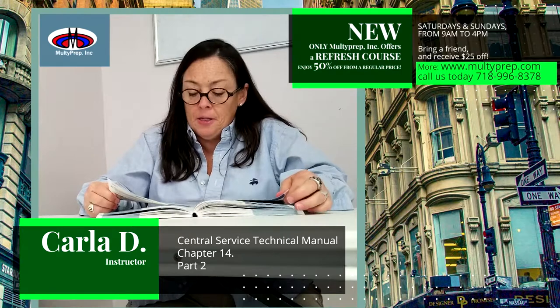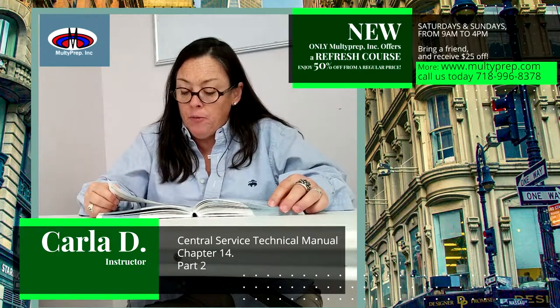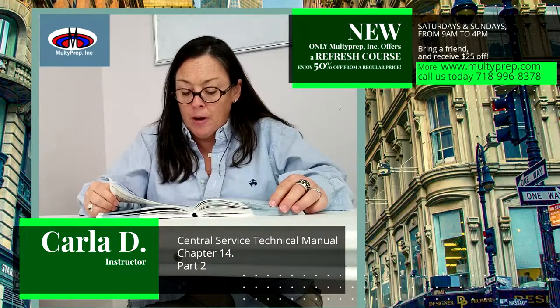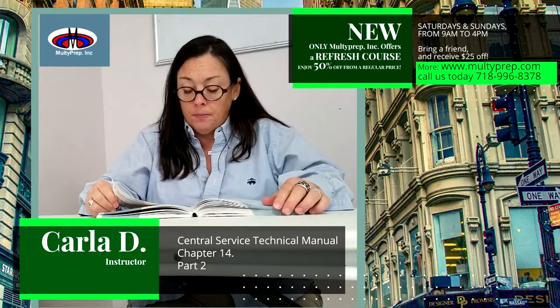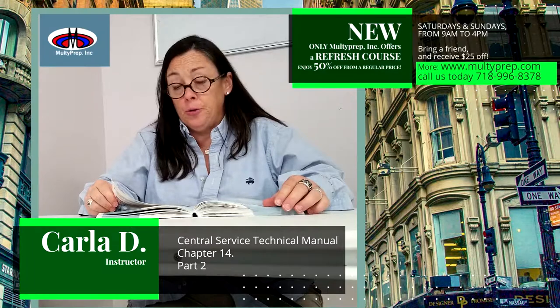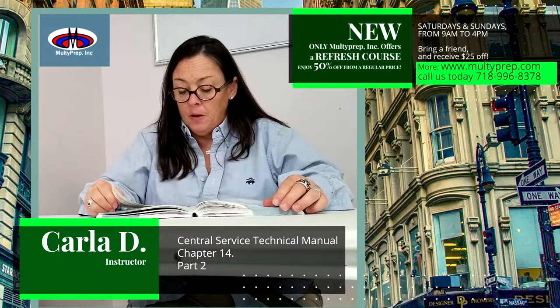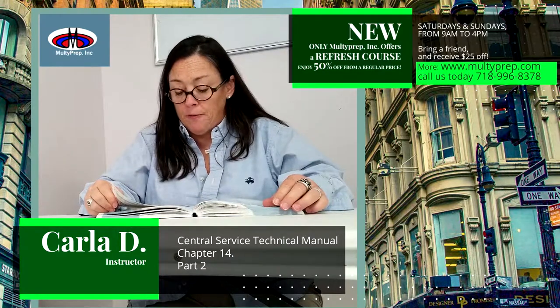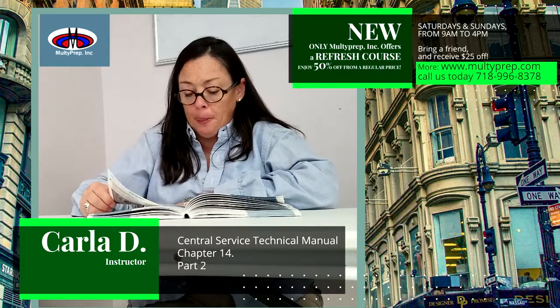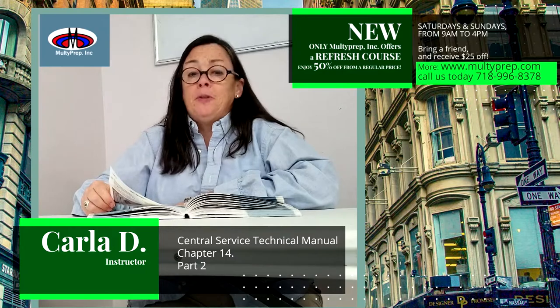Loading a steam sterilizer. To ensure full steam contact and removal of air, the sterilizer must be properly loaded to allow adequate circulation and drainage of condensate. Basic procedures for loading include allowing for proper steam penetration and avoiding overloading. Packages must be placed for efficient air removal, steam penetration, and evacuation. If a shelf liner is used, it should only be made of absorbent material.